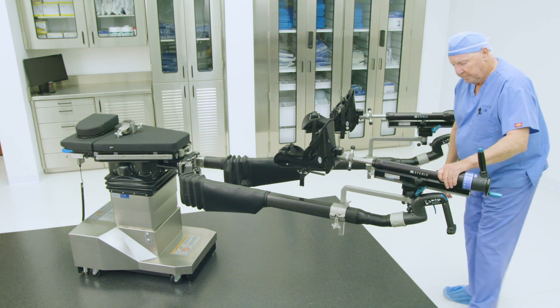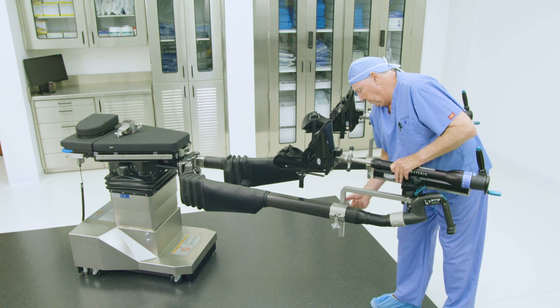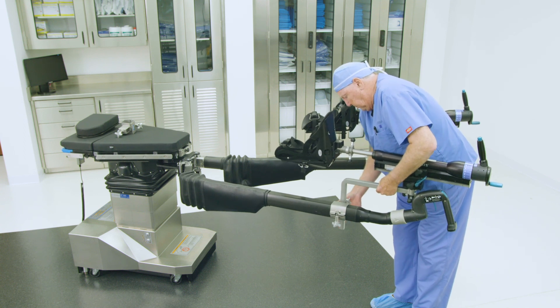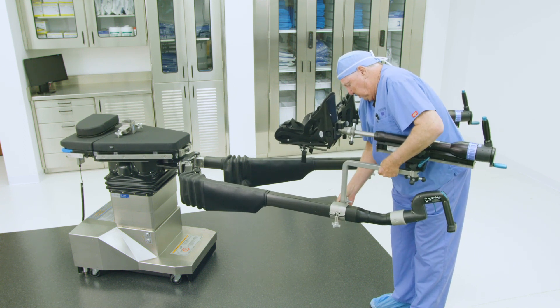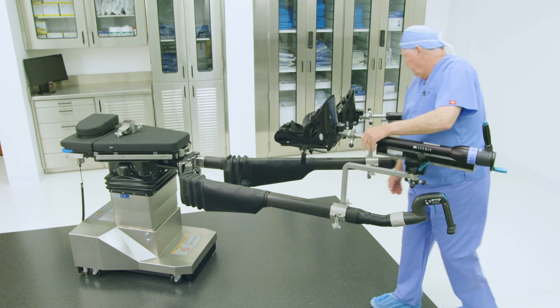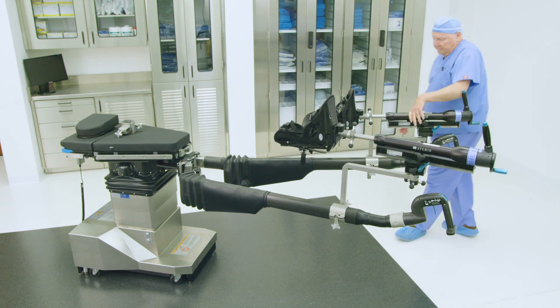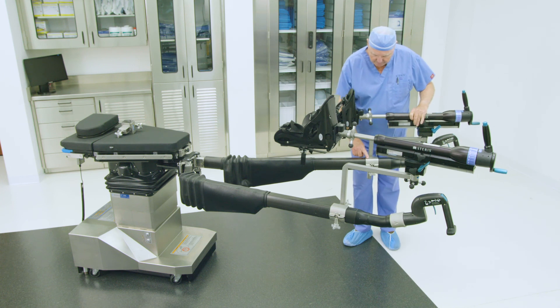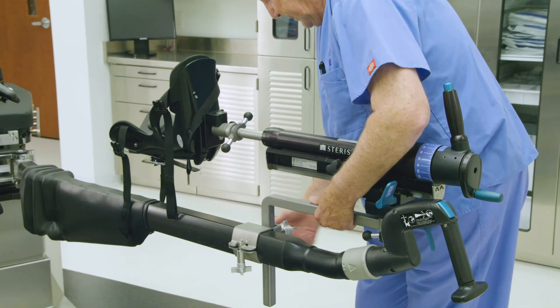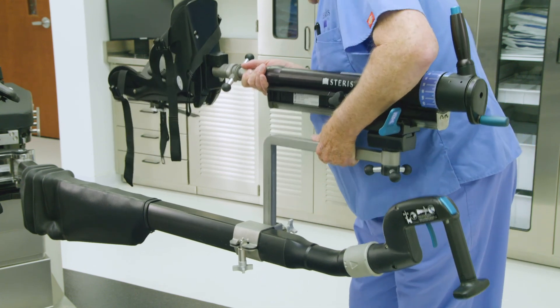Adjust the height of the L-shaped bracket on the operative leg abductor spar to a high height position to accommodate the operative leg when the patient is in lateral position, then retighten the clamp. Next, on the non-operative leg abductor spar, reset the L-shaped bracket in the spar clamp to a 90 degree horizontal position so that the L-shape is pointing toward the operative abductor spar.